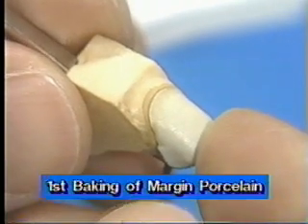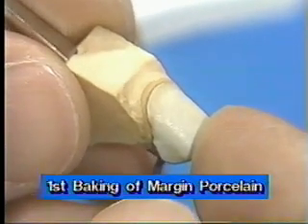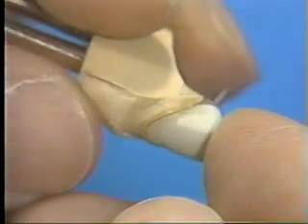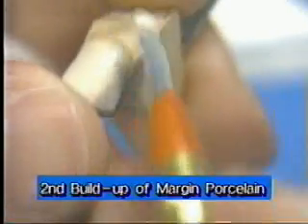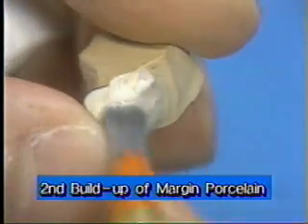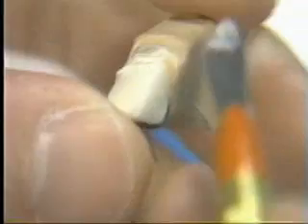Because of the baking shrinkage of margin porcelain, to some extent a crevice might be seen on the margin part. Then go to the second build-up and second baking. The second baking follows the same program as that of the first baking.